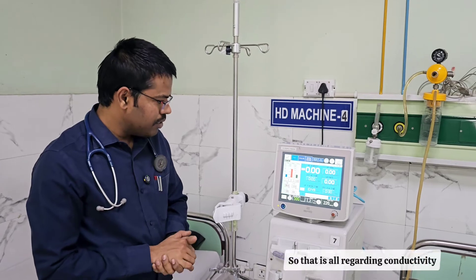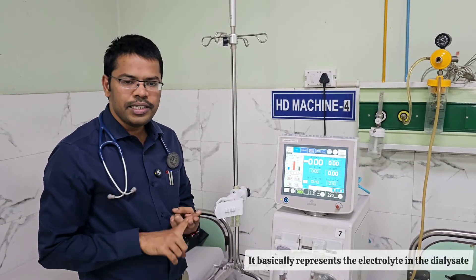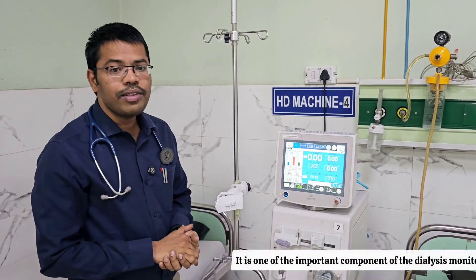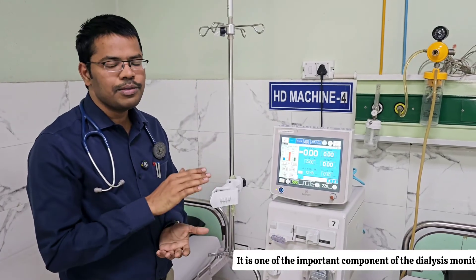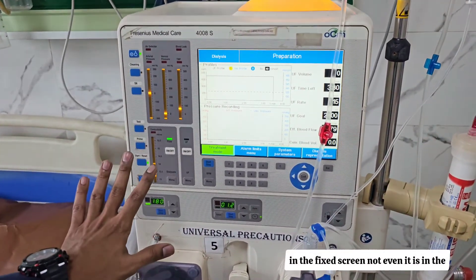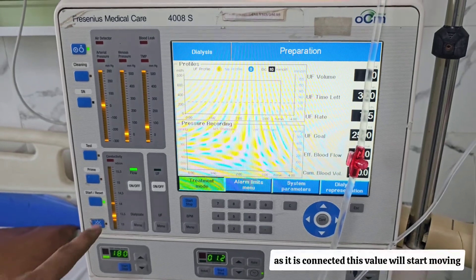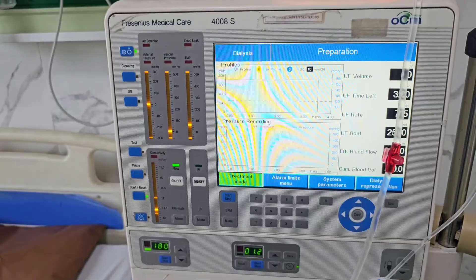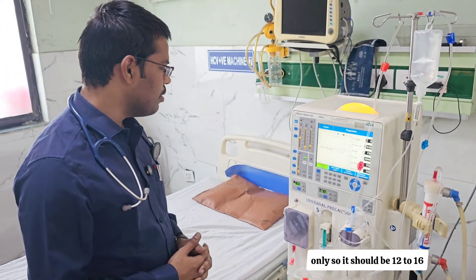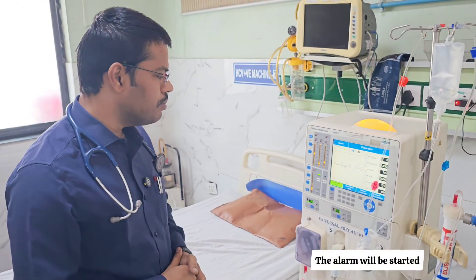In summary, conductivity normal value is 12 to 16 mS/cm. It represents the electrolyte concentration in the dialysate. If it goes high or low, it stops dialysate supply to the dialyzer. It is one of the important monitoring components of the dialysis machine. On the Fresenius machine, you can also see conductivity displayed on the fixed screen — again, 12 to 16 is normal. Once the machine is connected to a patient, this value will start moving. If it goes above or below that range, the alarm will start.